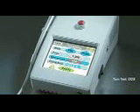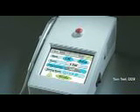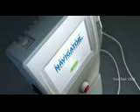It gives the practitioner the peace of mind that they don't have to bog their mind down with trying to remember all this — it's just right there for them. And for the advanced user, it has all the functionality and the flexibility to have individual settings, really customize your laser experience as you get more experience.